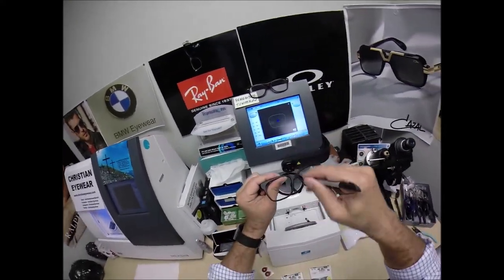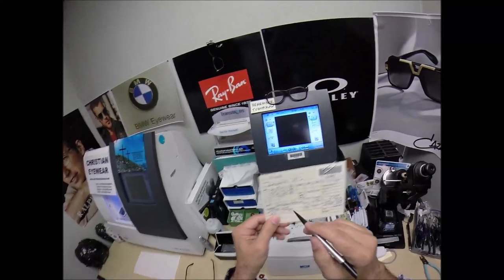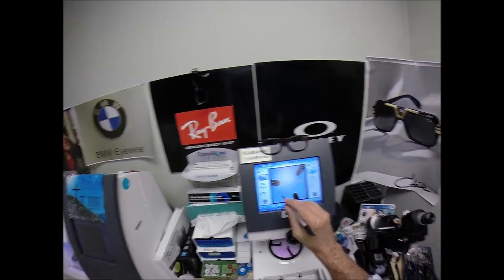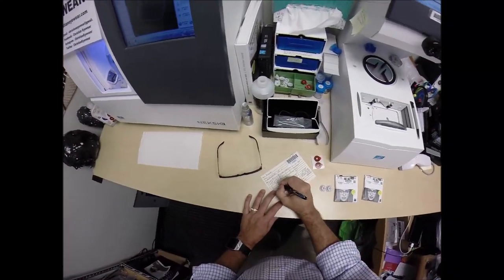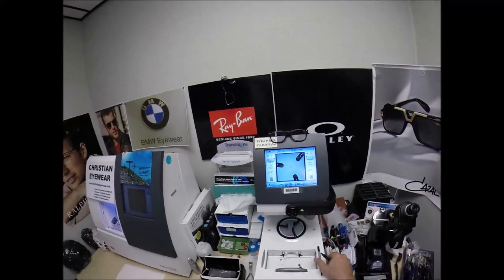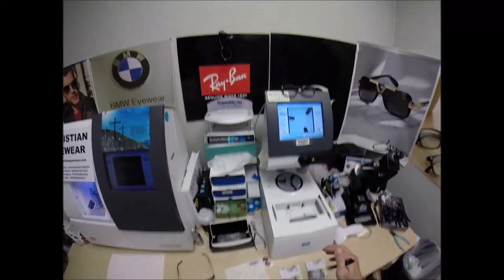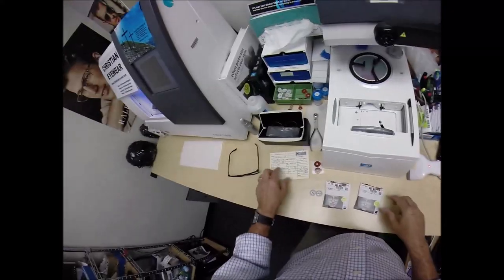That is the shape of the lens that I'll be cutting. I'm going to move on to the next screen, add your pupillary distance, and let's do the optical center height of 22. Let me write that on there — 22. We're going to do 67. And let's see, I need to get your lenses prepped.